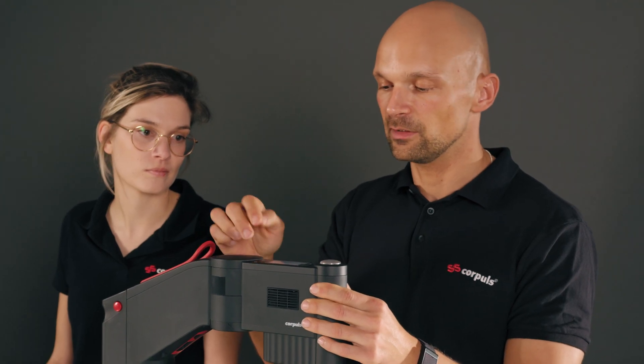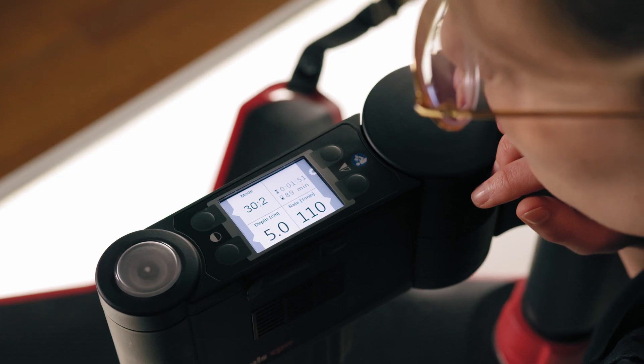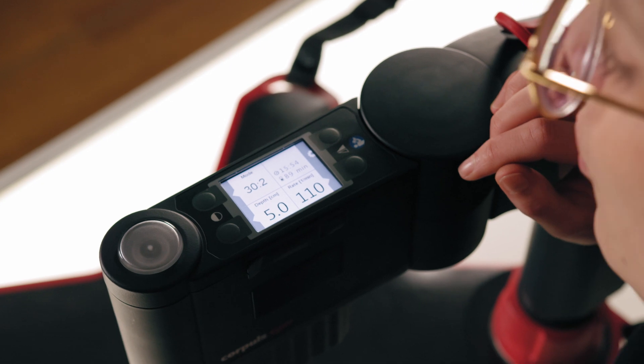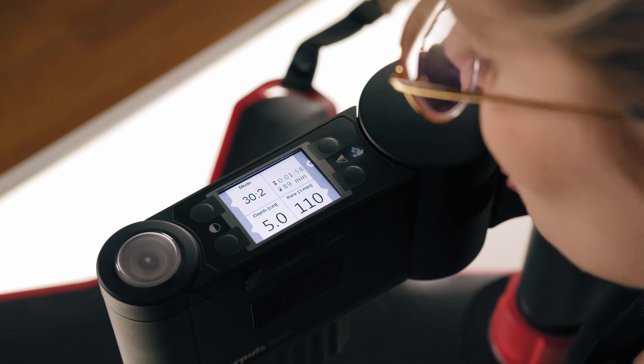We show the therapy options that can be changed using the soft keys in a separate tutorial. The remaining battery life can also be seen on the display — recognisable by the small battery symbol next to it. Ideally, this is 90 minutes.